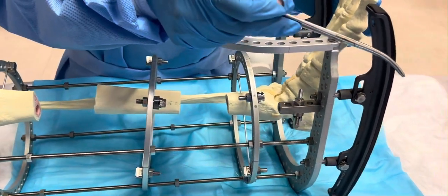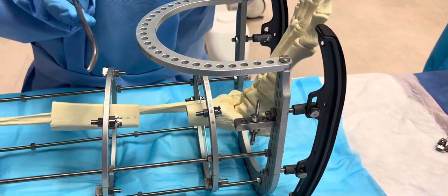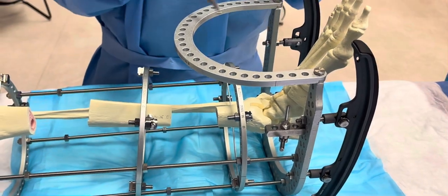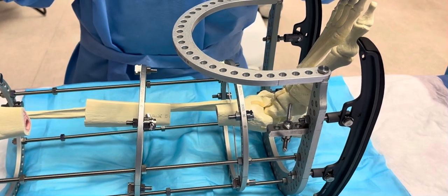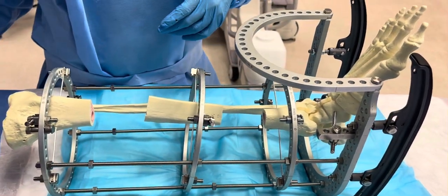These rockers could be very beneficial in other frame constructs, because you're shortening that area while you have to re-lengthen. So in the shortening with re-lengthening scenario, the rockers are needed. Here in bone transport you can also use them, but in the other construct it's definitely going to be a limb-lengthening procedure during the process.